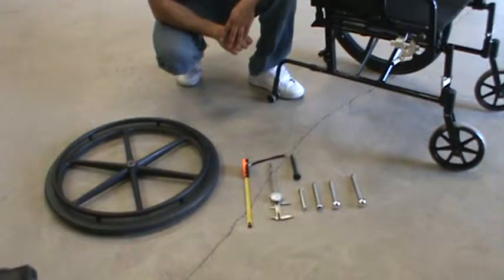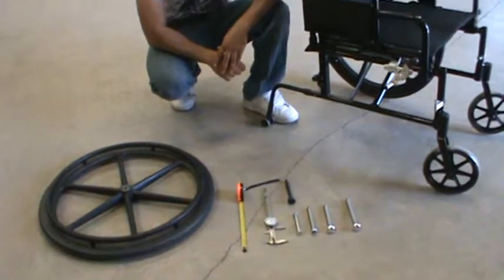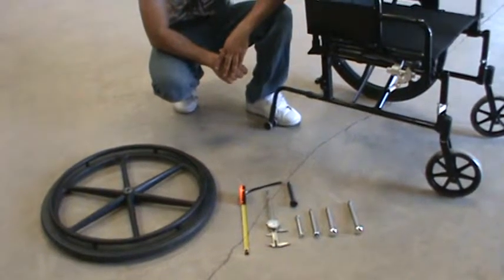This will demonstrate how to choose the correct axle for the rear wheel of your wheelchair. There are several different kinds of axles.